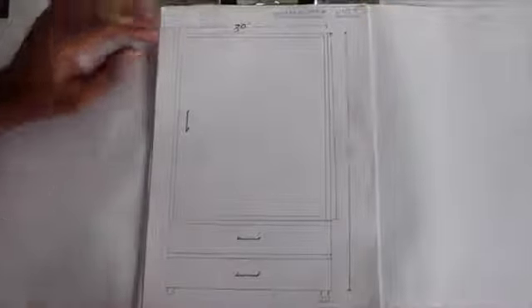So this is a vertical Kshara Sutra Cabin. It is made up of plywood, glass, and aluminum. The Kshara Sutra cabin I am showing today is 48 inches in length and 30 inches in breadth.